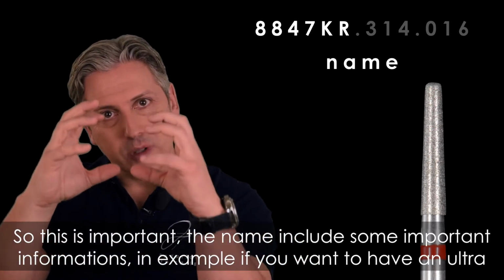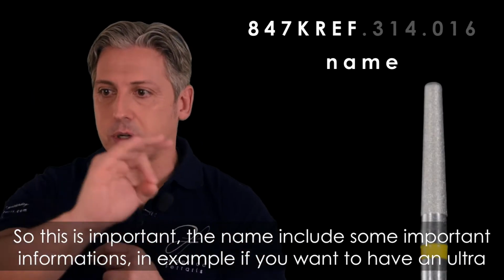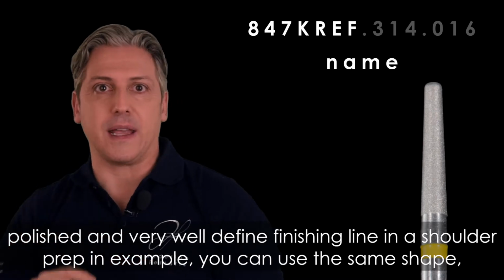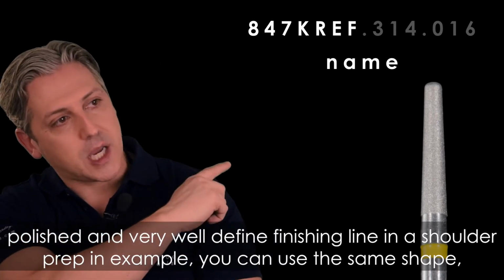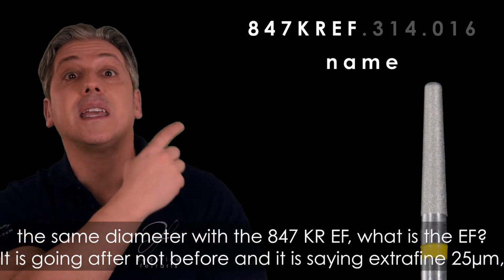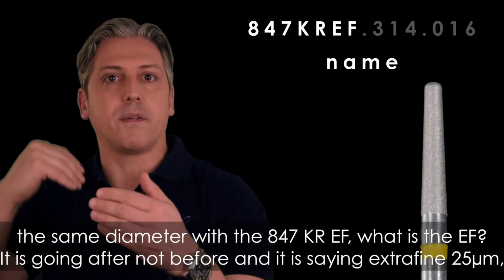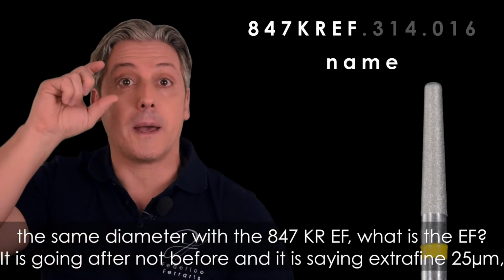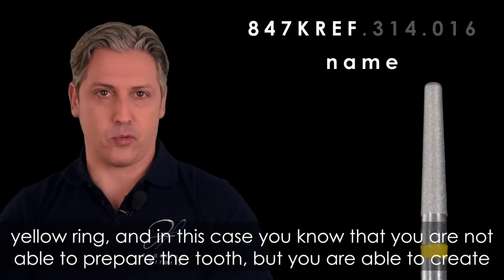Okay? So this is important. The name includes some important information. For example, if you want to have an ultra polished and very well defined finishing line in a shoulder prep, you can use the same shape, the same diameter with the 847 KR EF. What is the EF? It goes after, not before, and it is saying extra fine, 25 microns, yellow ring, okay?